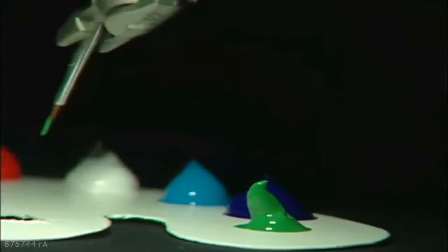Da Vinci also studied anatomy, but even he would be amazed at what these instruments can do inside the body through tiny incisions just a few millimeters long. These procedures are very precise, each one like a Da Vinci work of art.